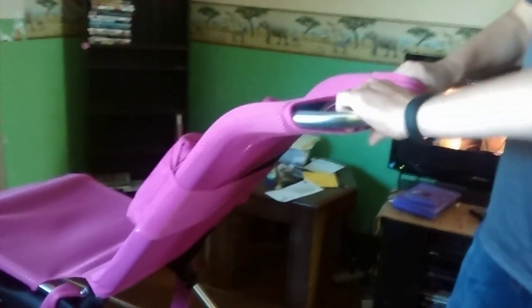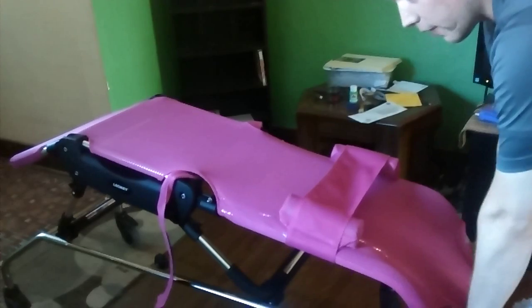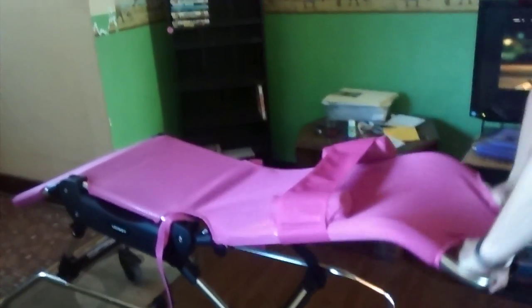Do you want to speak to where there are fixed points that it has to lock in at? Yes, there are fixed points, so once you let it go, it will go up until it locks in again, right there. Down to our next point there, down to our next point there, and our final point there, which we won't do because we'd fall out backwards.